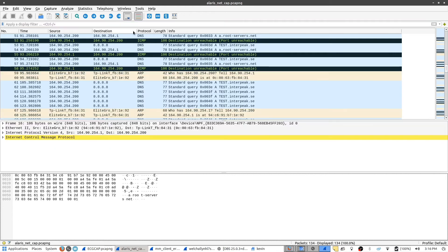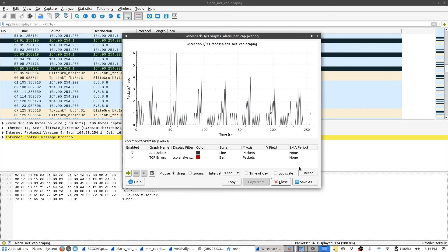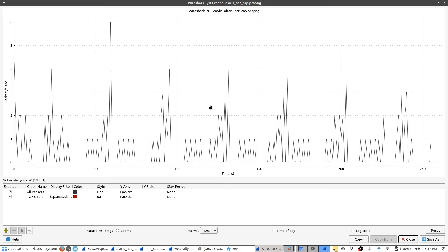If we go to statistics and IO graph, you can see it's a very erratic, rhythmic pattern to the traffic. You can see these spikes popping up, but there's never any kind of constant data stream going through. That tells you it's not able to send or receive anything of any real consequence. Normally with sustained network traffic, you'd have at least some kind of peak and valley that continues on for a while. But this is straight up and down — just bursting data with nothing else coming out of it.